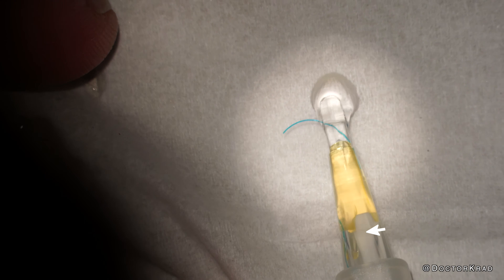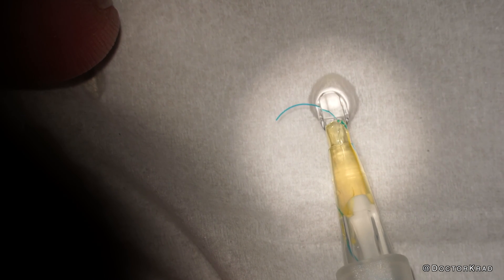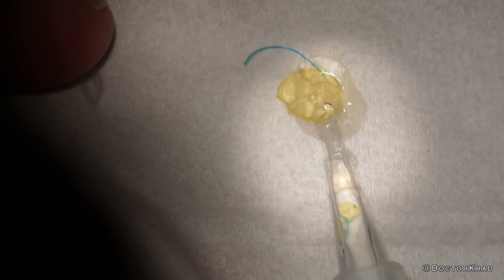I'm feeling a little bit of resistance right here, and I'm going to inject this lens slowly so I can watch carefully how it goes through. You can see a piece of the yellow part of the optic fall behind — the lens shredded in half.